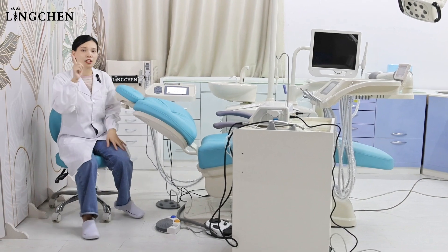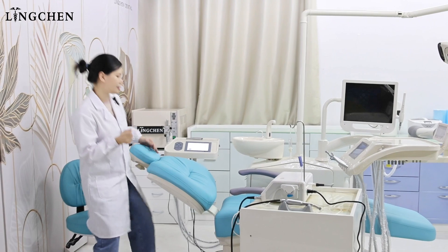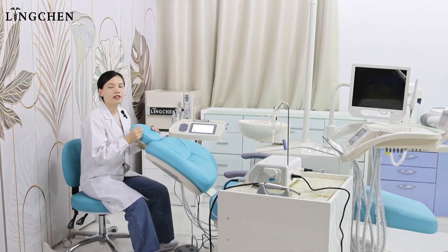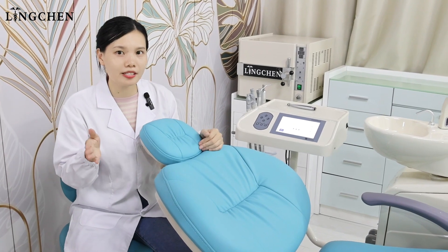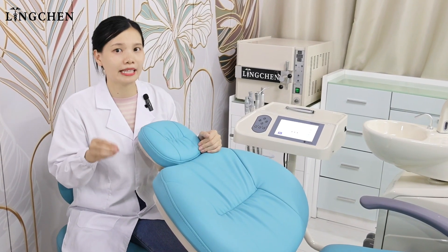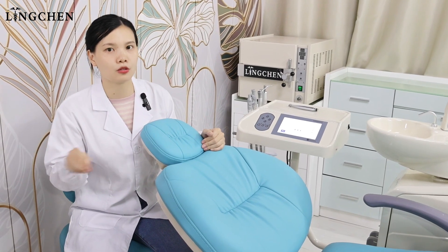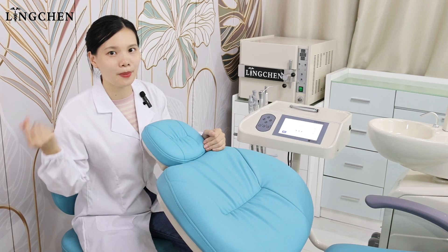The third point is about water delivery. When the dentist is working, sometimes the water is not easy to reach. And for the traditional implant, after the dentist finishes the work, he needs another 15 minutes to make the regulation and return all the tools to their position.